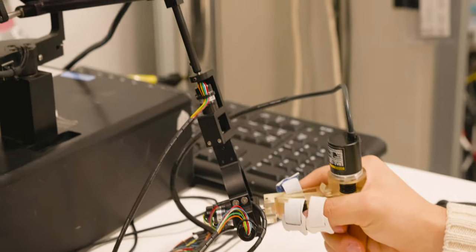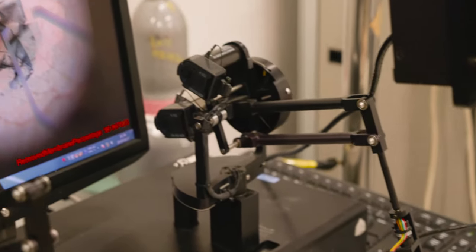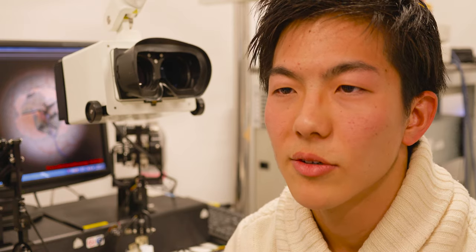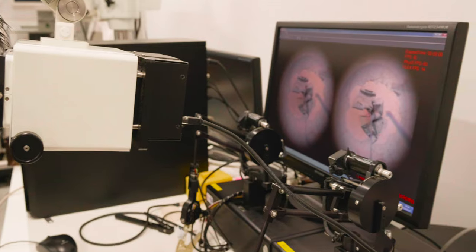My name is Miki Nori Kanehara. I'm an undergraduate student, and I'm studying virtual reality simulator for robotic eye surgery. The virtual reality system is useful for eye surgeons to learn how to control robots.